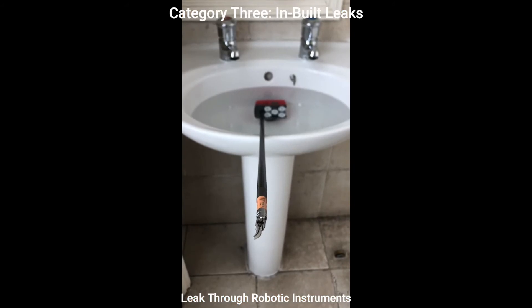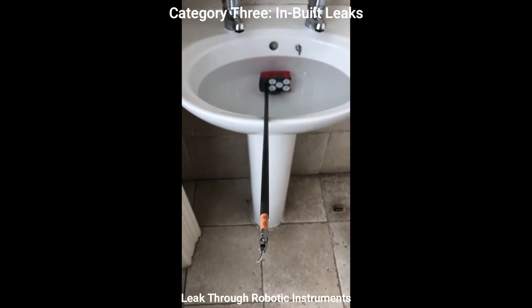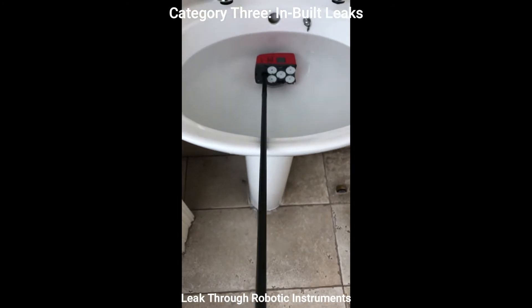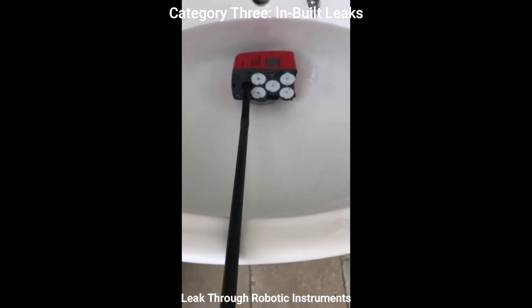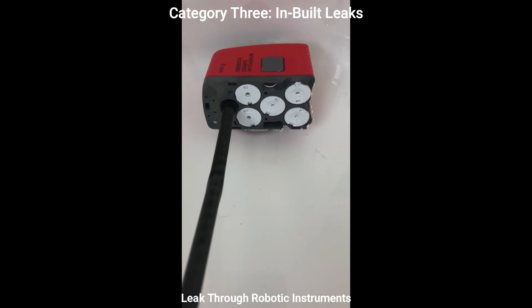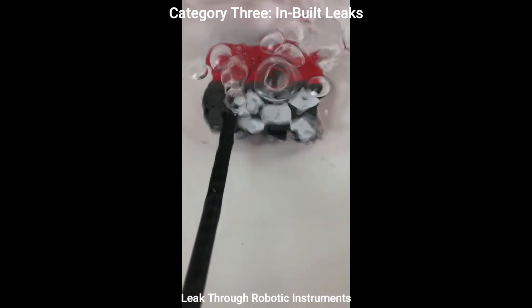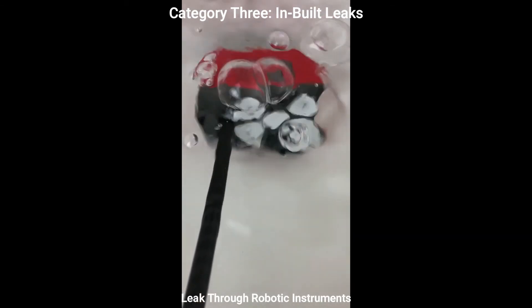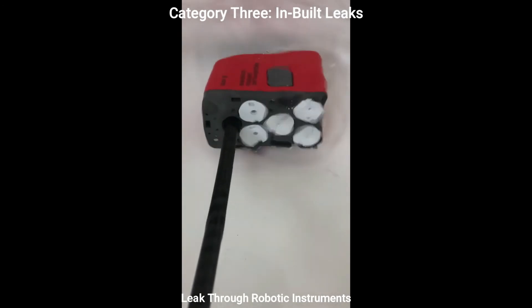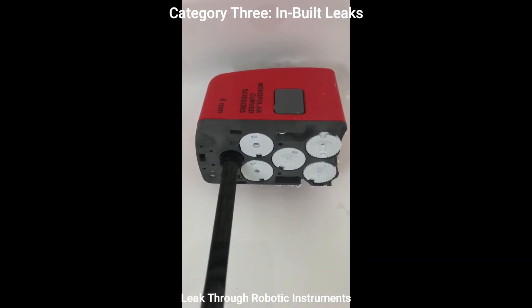To see better where it's leaking from, here the instrument head is submerged in water and again a positive pressure is applied to the instrument tip. There are several areas of leakage, some of which are sites of attachment into the robot, although these are not intended to be hermetic seals.